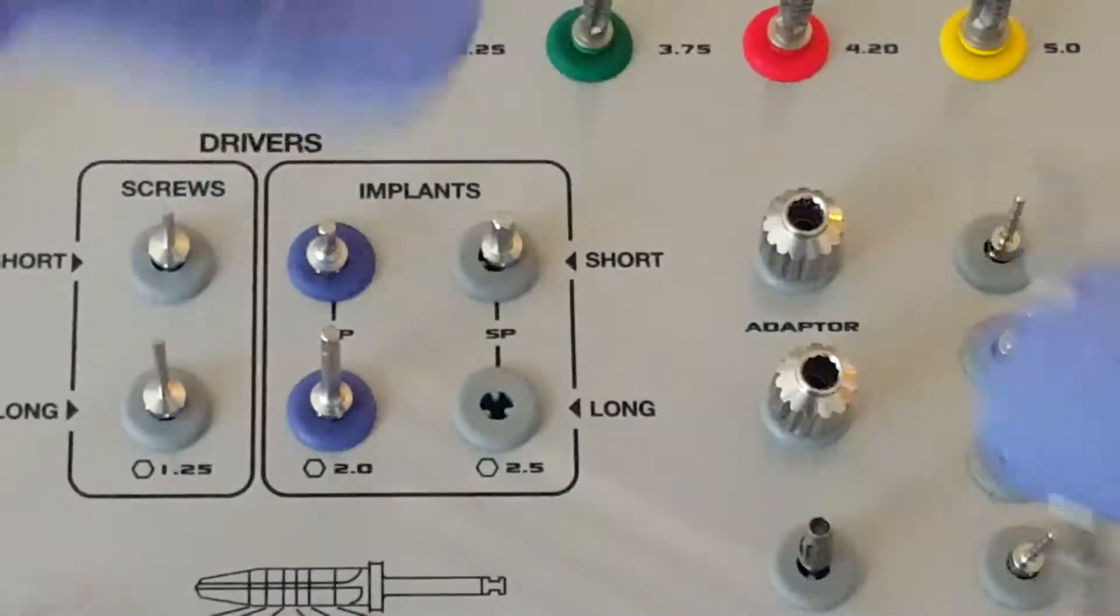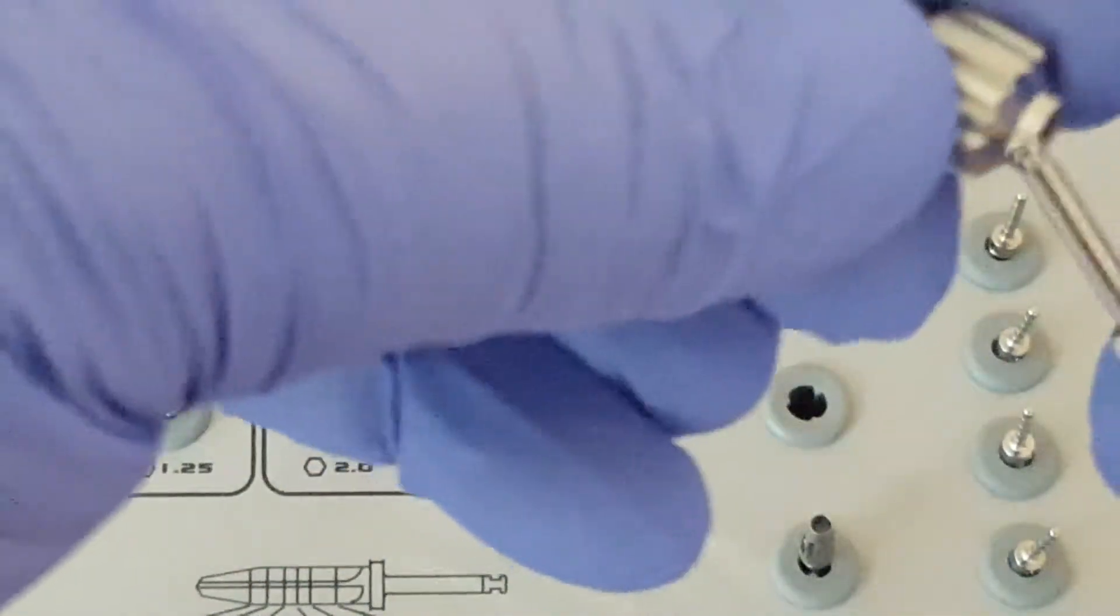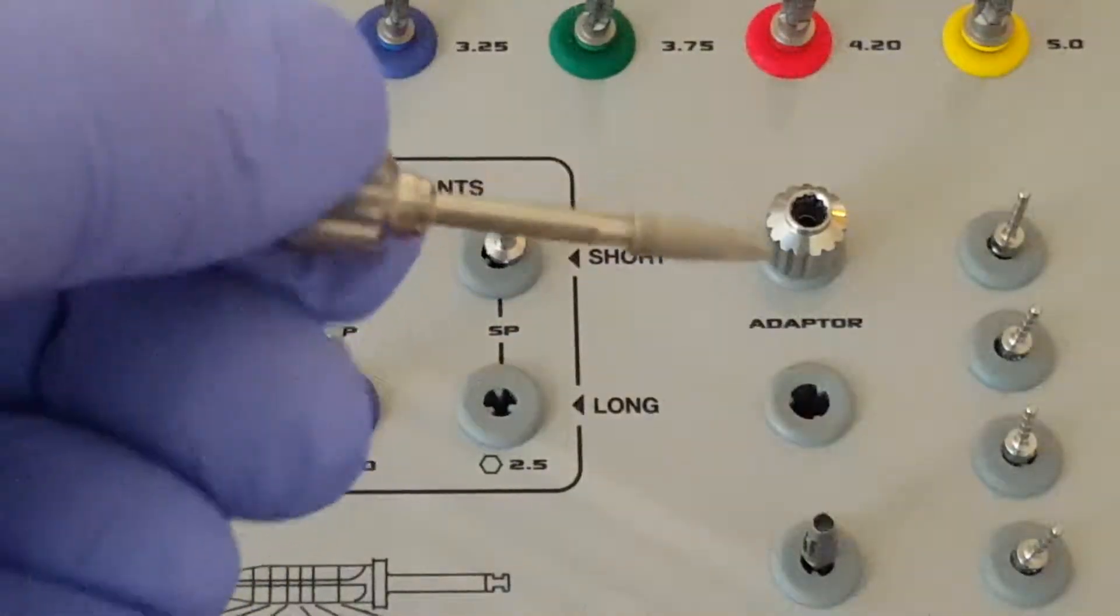We can attach the adapter to the handle. If it's precisely in place, it can be hand driven.